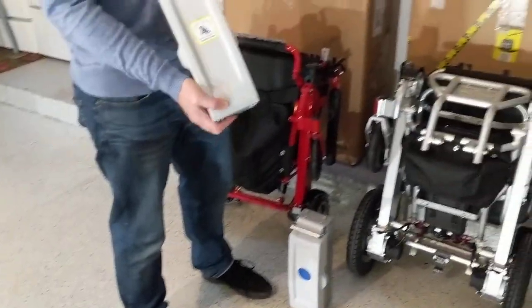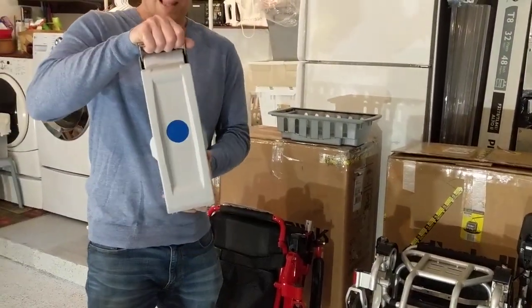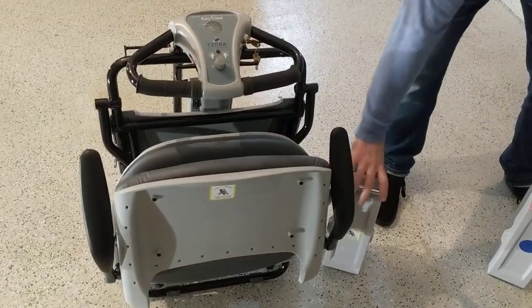If we pan over here, I've got a couple of batteries. I have the very light lithium battery that we're going to be demonstrating, and then I have the not-so-light lead-acid battery that we're going to be demonstrating with the device, and of course we're going to be demonstrating the device itself.